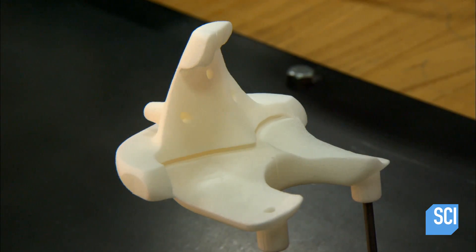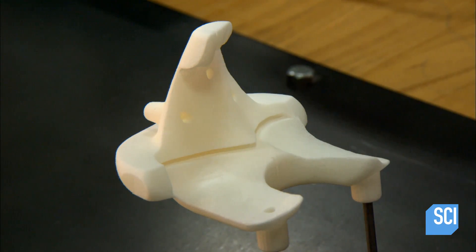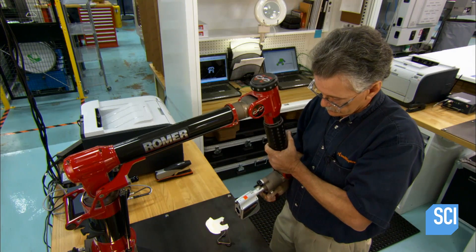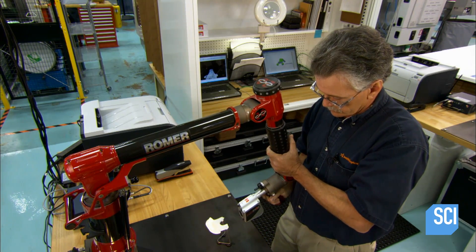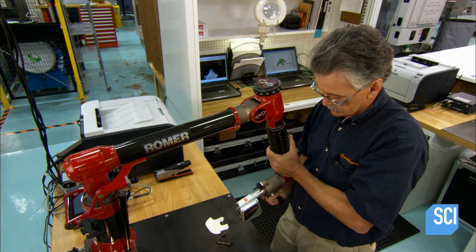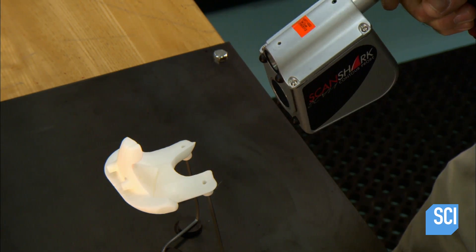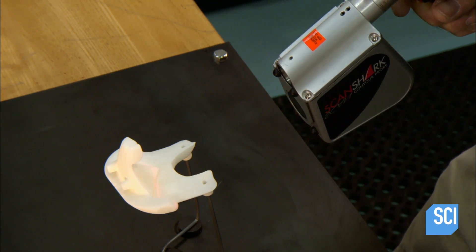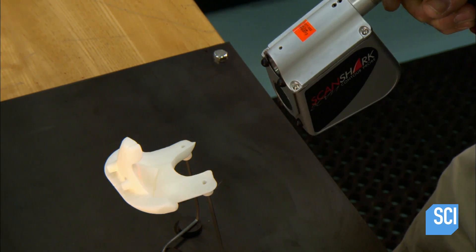But first, every template must pass a quality control inspection. Using a laser, a technician scans it to make sure the manufacturing process produced an exact match to the patient's bone.